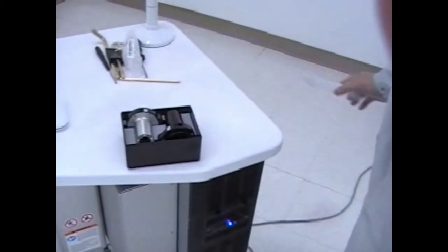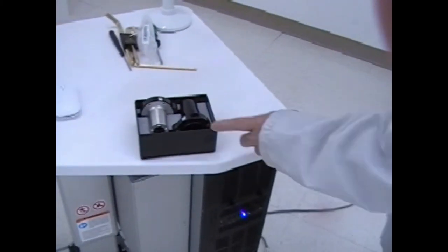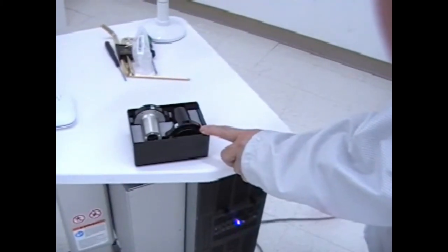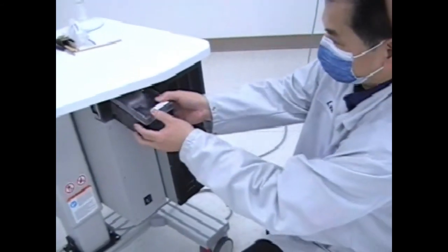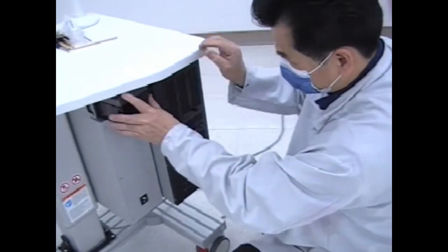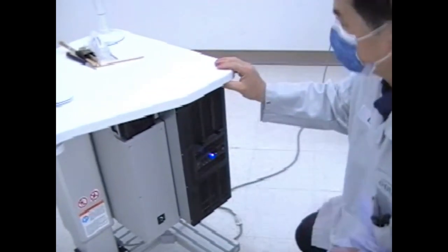There is a cam box with two lenses. The silver is the full range lens, and the black is the normal cornea pachymetry and line scan lens. The storage location is just above the control box.